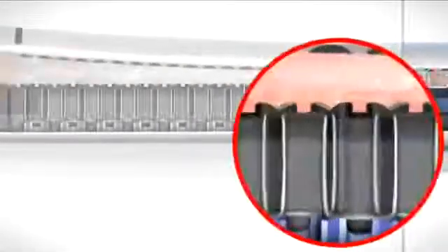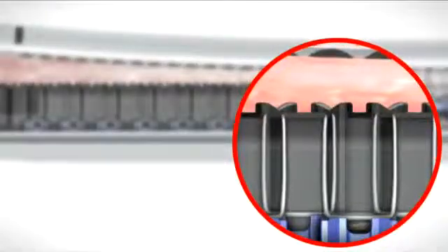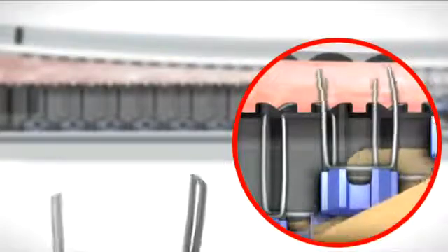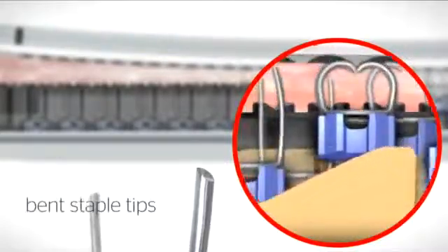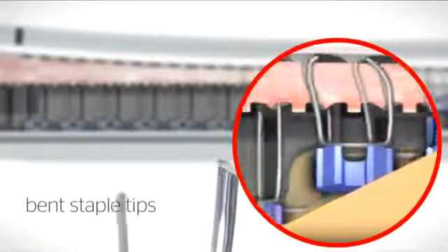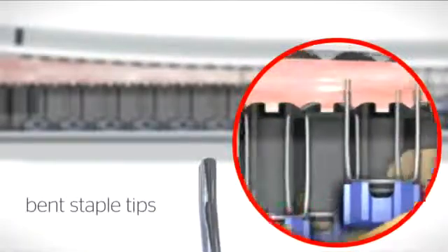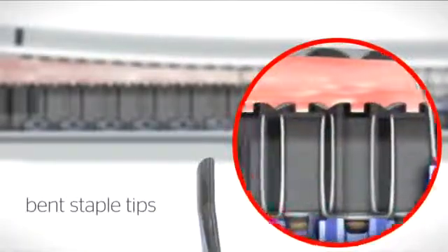Two innovative staple design enhancements have been implemented to moderate this effect. Bent staple tips mitigate the slight change in trajectory of staples due to tissue movement, allowing them to hit the anvil pockets for consistent staple formation.